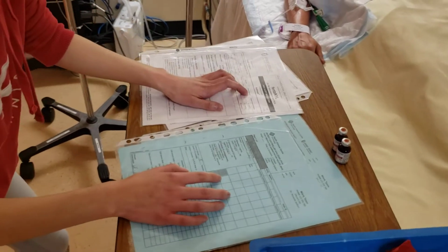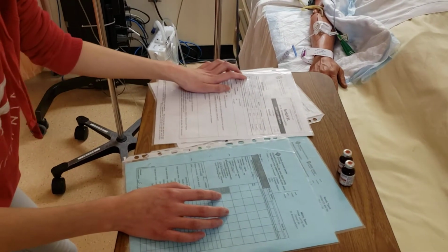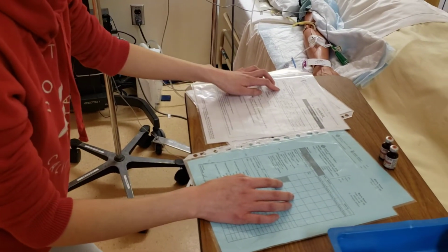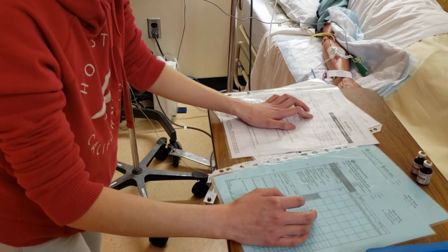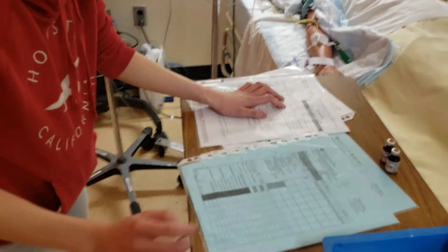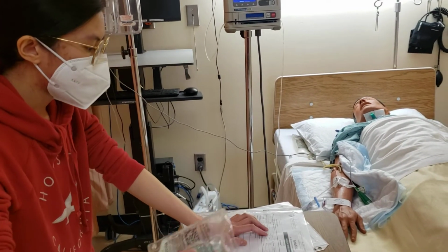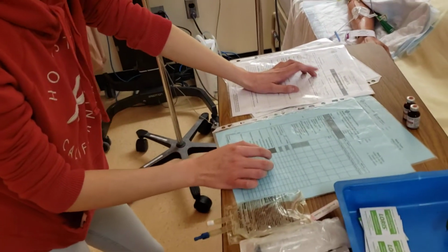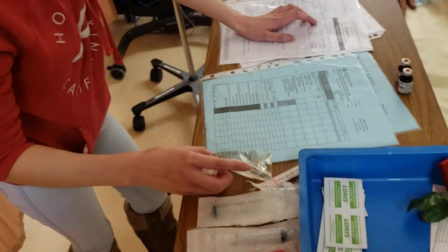I'm looking at the concentration on my PDM of 10 micrograms per ml, and I would need 500 micrograms of fentanyl, or 2 of the 50 mcg per ml, which would be 10 ml of the fentanyl, and a diluent of 40 ml normal saline. I have that ready right here. I have 50 ml, and I would remove 10 ml to get that 40 cc of normal saline. Once I inject the 10 ml of fentanyl here, the final volume would be 50 ml.